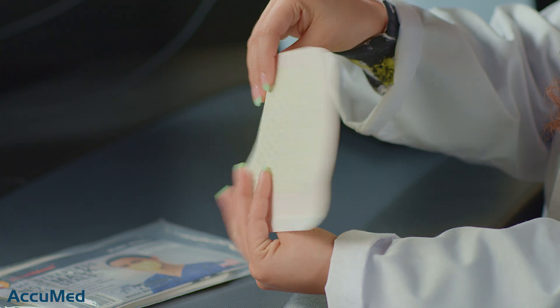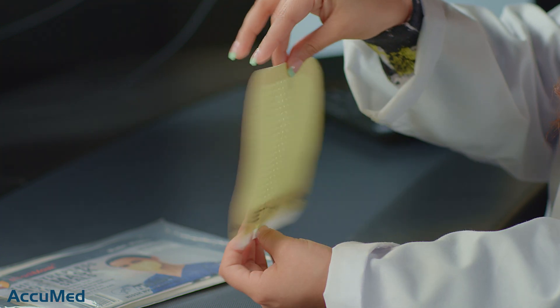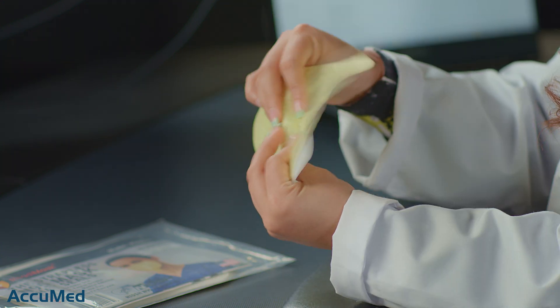Like I said, this is a very interesting design — this is the front and this is the back. It is also a very thin material so it should be very breathable. I'm going to see if it has some instructions on how to put it on — okay, here are the instructions.